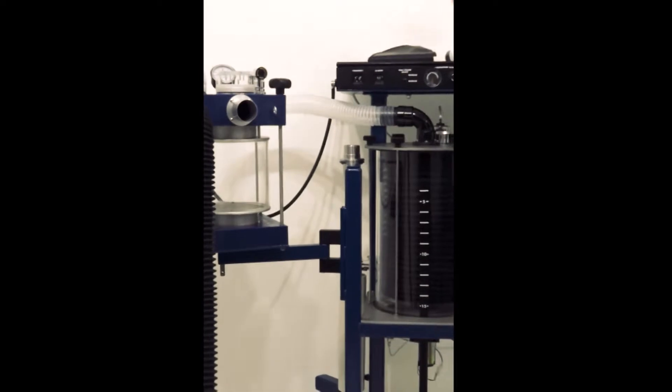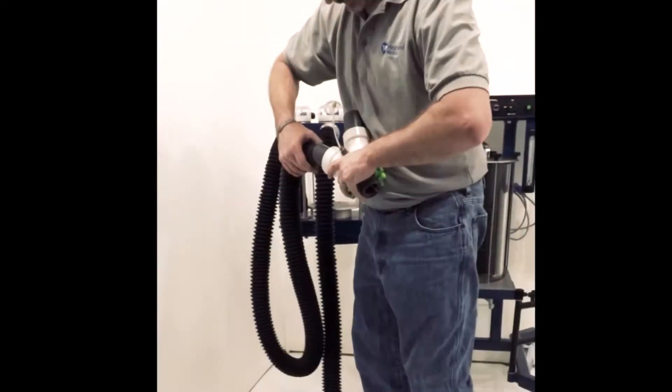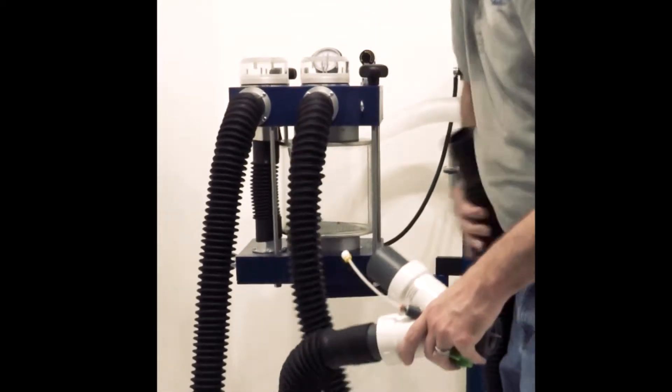Next, attach both sides to the Y patient adapter. This portion then goes to the patient.